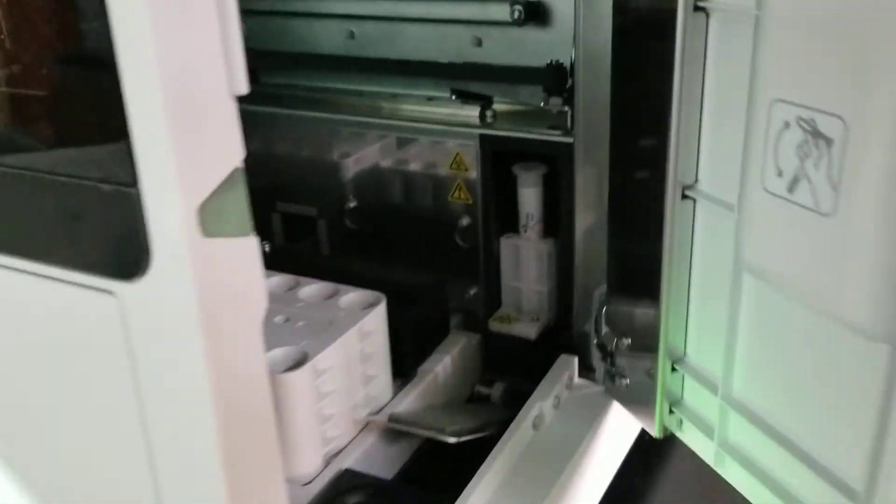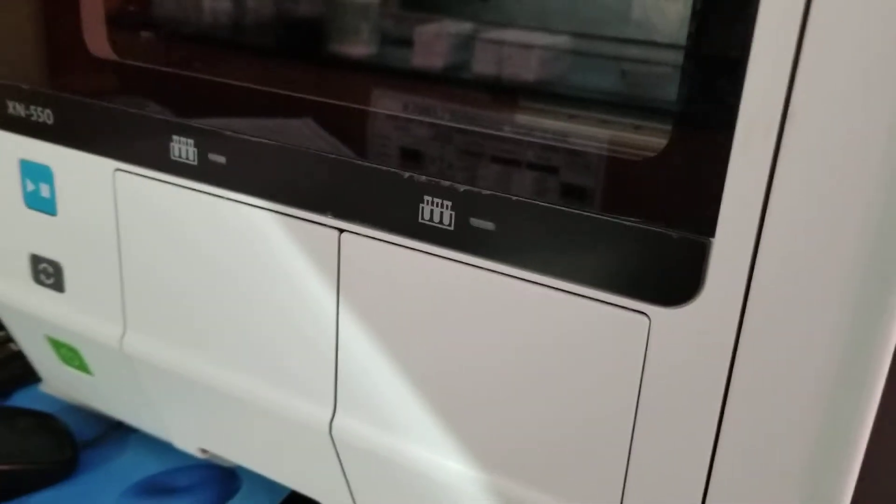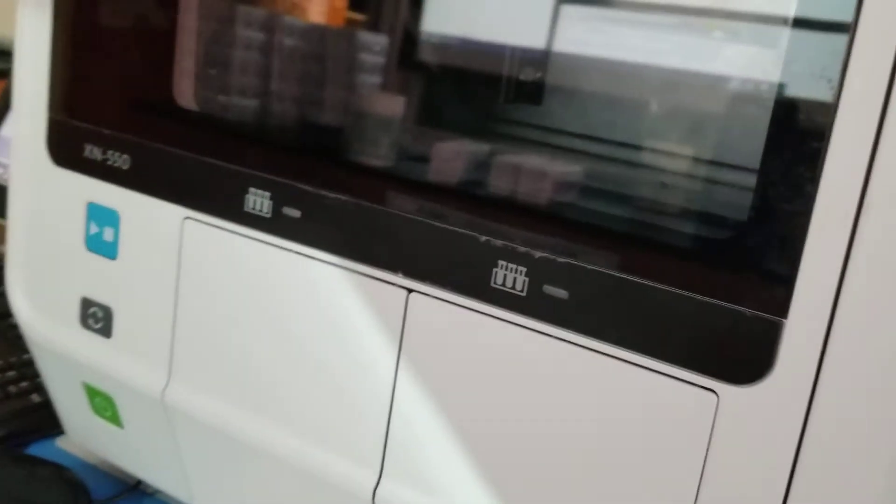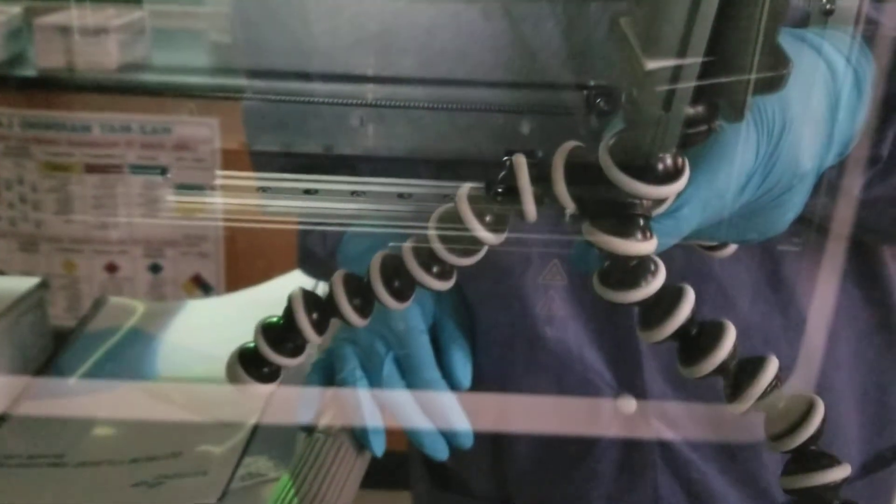It reads the barcode. You can't really tell because there's too much of a glare. But it takes it into the back there. It reads the barcode and then it's going to ask us to go ahead and pull it out again. Once it's done, I really tried to remove the glare here today, but the instrument, you can't really avoid it because it's got this beautiful glass panel on the front.